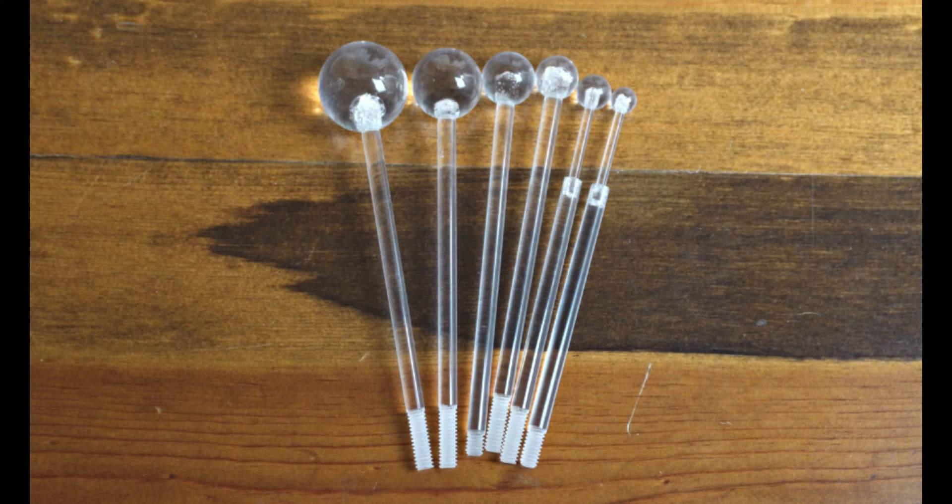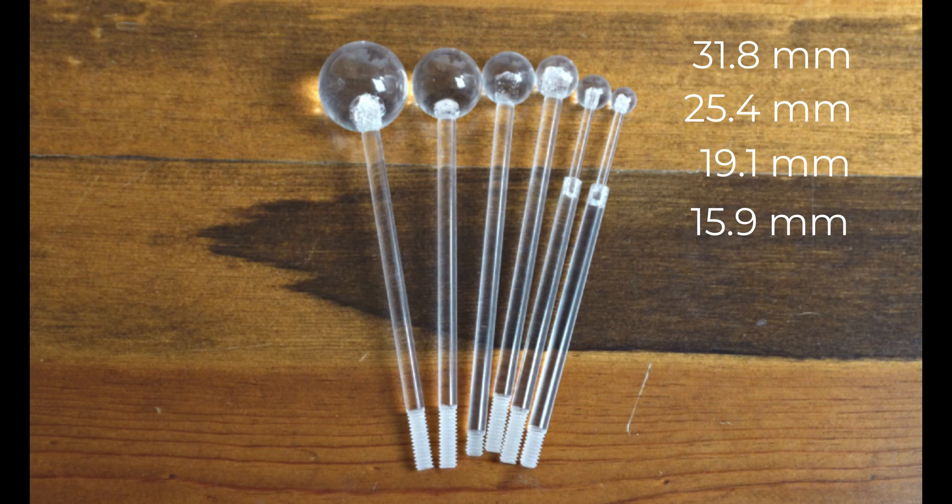Those spheres are going to be 31.8 millimeters. The next one is 25.4, 19.1, 15.9 right here. And then we have the 12.7 and the 9.5. So we're going to take each of these spheres and they are going to go inside of our Phantom.